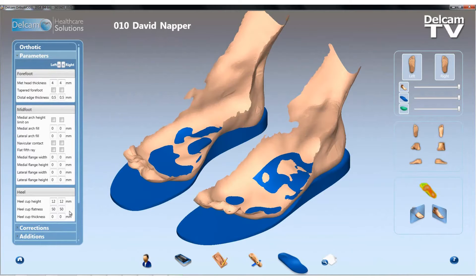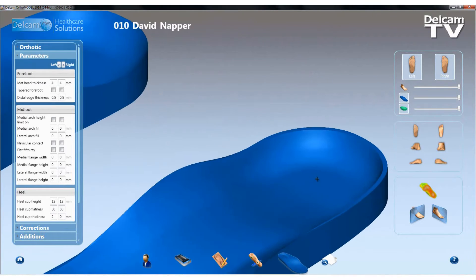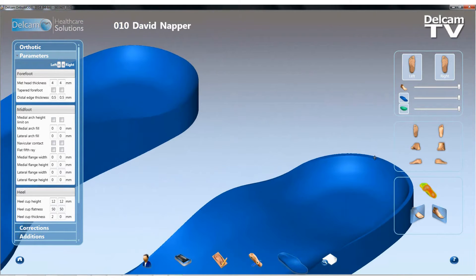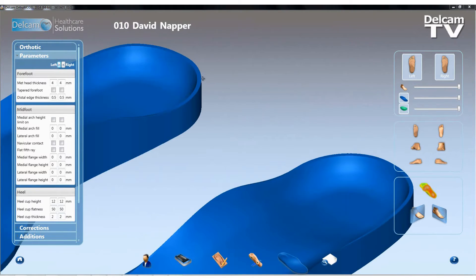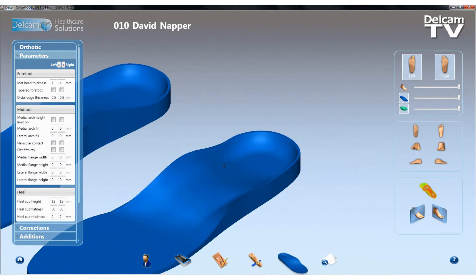The first new feature I'll show you is we now have the ability to add a heel cup thickness value. I'm going to select on the left foot a heel cup thickness of 2mm and say OK. Now if I undraw the foot scan data and zoom in, you can see the left orthotic has this flat region which is 2mm wide, but the right orthotic doesn't have that because we haven't applied it to that side yet. Now I can mirror left to right, which means we now get exactly the same on the right. This increases the thickness in this particular region of the orthotic and makes it more manufacturable.